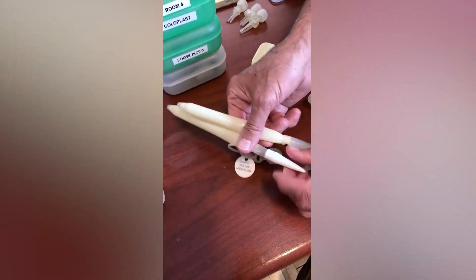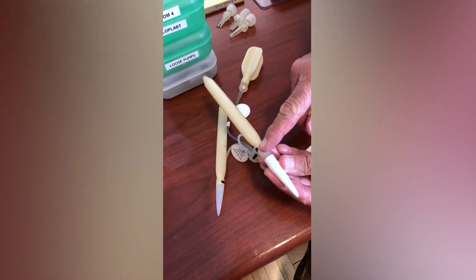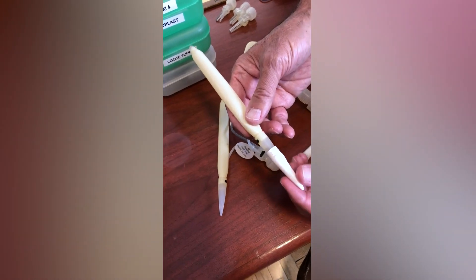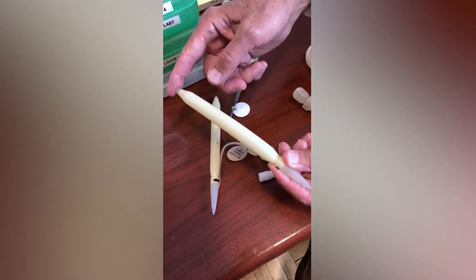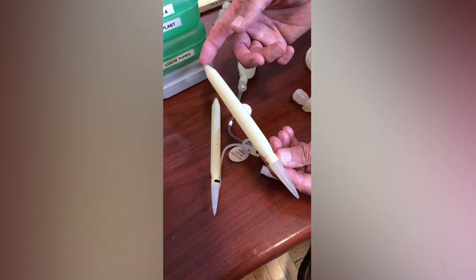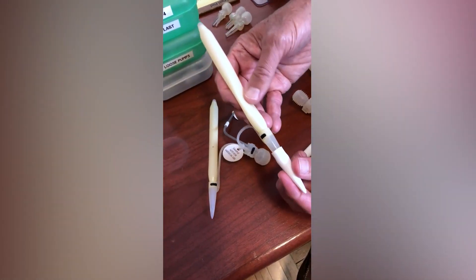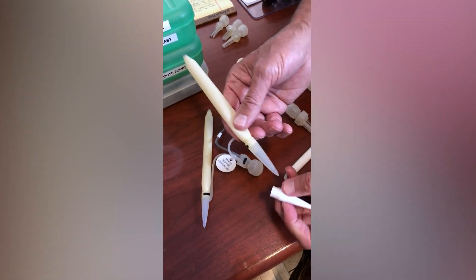If one adds a rear tip extender, you now have not only the original 5 centimeters from before, but also another 2 centimeters — so you've increased the non-inflatable portion of the cylinder, which deteriorates the quality of the erection. It's much better to put as much of the inflatable component in the penis as possible rather than adding rear tip extenders. For example, if this is a 20 centimeter device and a patient measures 19 centimeters, I will put a 20 and cut a little bit from the back — that improves the erection rather than adding a 1 centimeter rear tip extender to an 18 centimeter device.